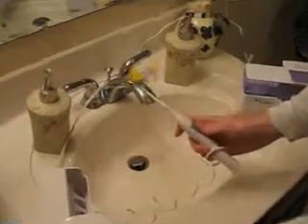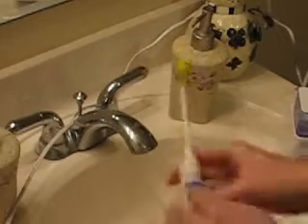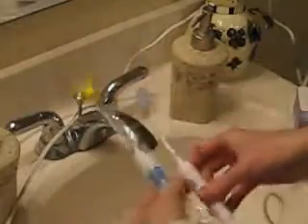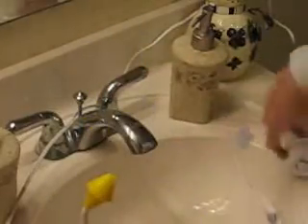As you remember, the older one just puts out a single stream of water that you can adjust the intensity of. The newer one is more compact, and it also has the ability to mist saline solution in.